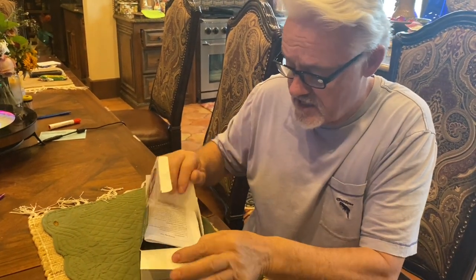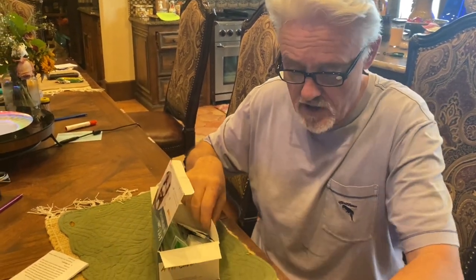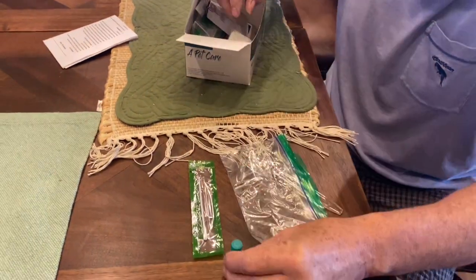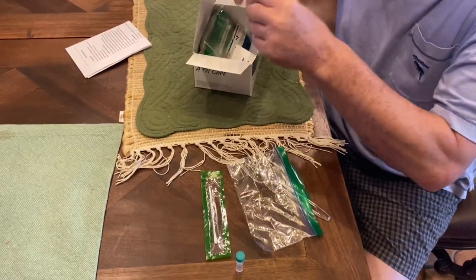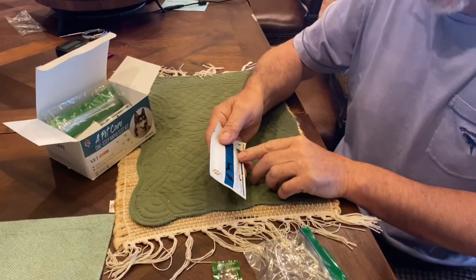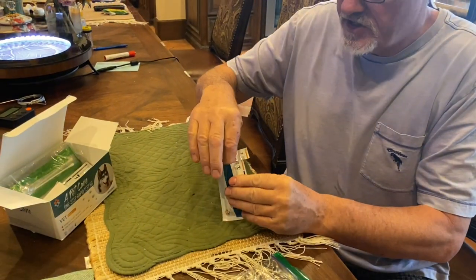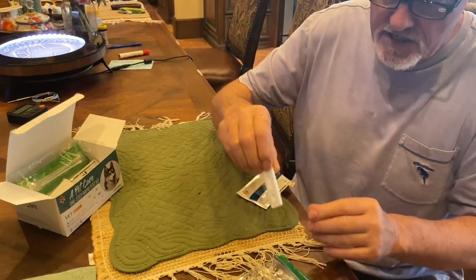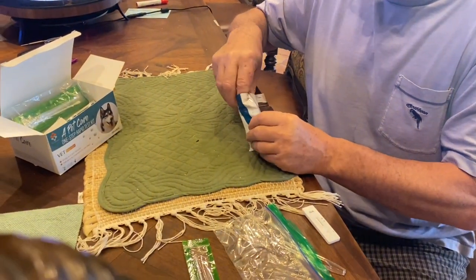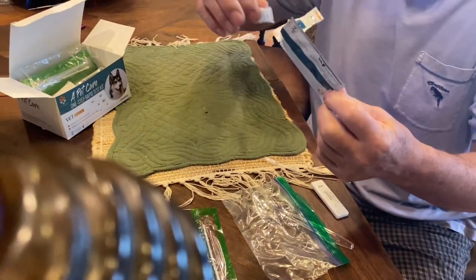This is a box of 10 kits — you can buy in packs of five or ten. It comes with instructions, a swab, some little buffer tubes, and the test cassettes. They've got a shelf life of approximately two years. The expiration on this one is May 2022, so it's got about one year left. Inside each pack there is a little cassette, a little pipette, and a silica desiccant pack — you can throw that away.